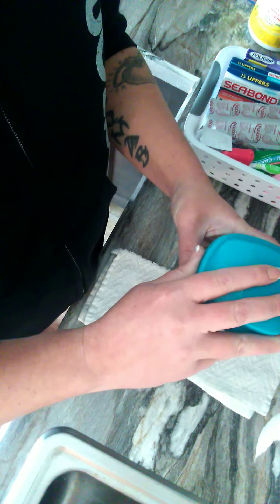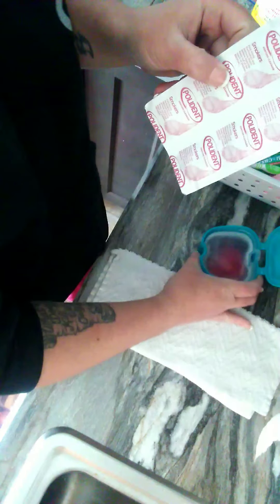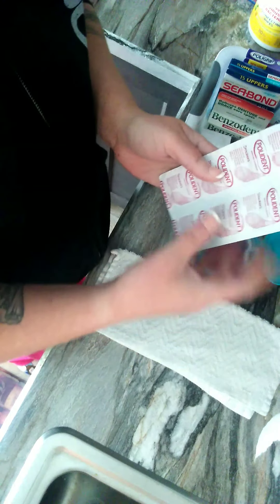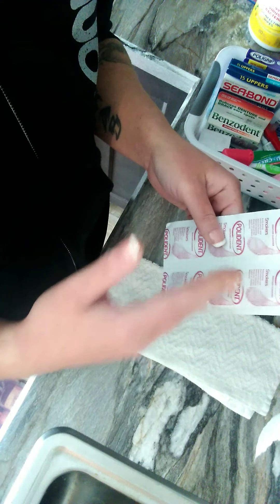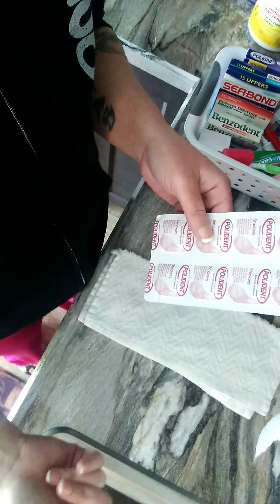In my cup is my warm water with my denture and my solution. I use Polident Smokers. This stuff is absolutely incredible. What everybody says — even if it says whitening on things, no matter what you use, it means it's lifting up the stains and making them to the whiter shade that you picked when you got your dentures.